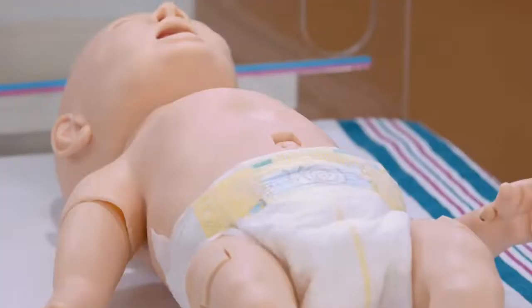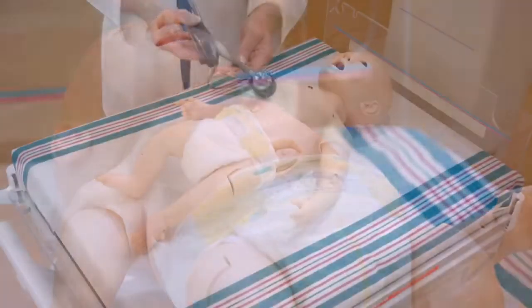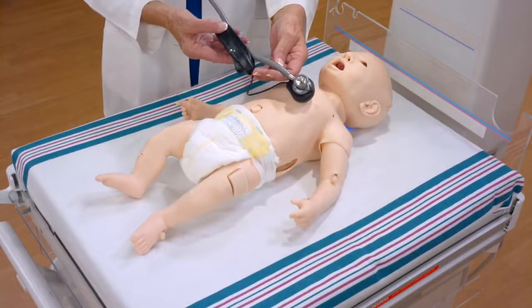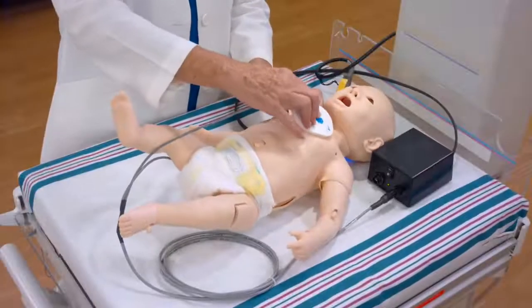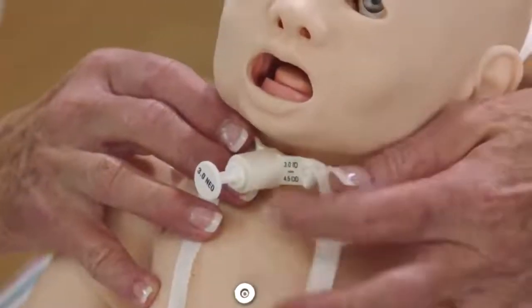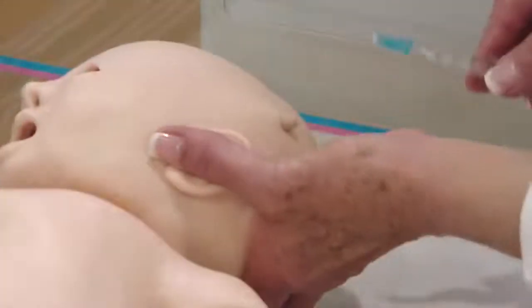I'm Wendy Jo Wilkinson, Product Manager for CAE Healthcare, and I'm here today to introduce you to CAE Luna. Luna is our new wireless tetherless newborn to one-month-old mannequin that was designed to fulfill the requirements for newborn assessment, neonatal and infant stabilization, and resuscitation.